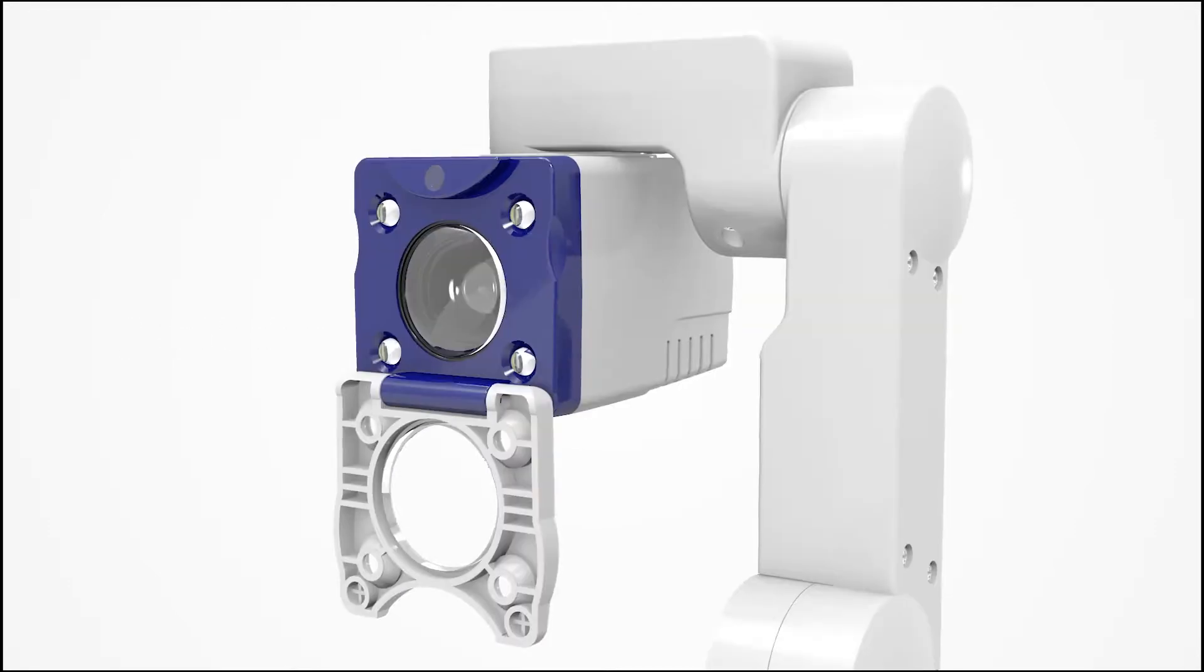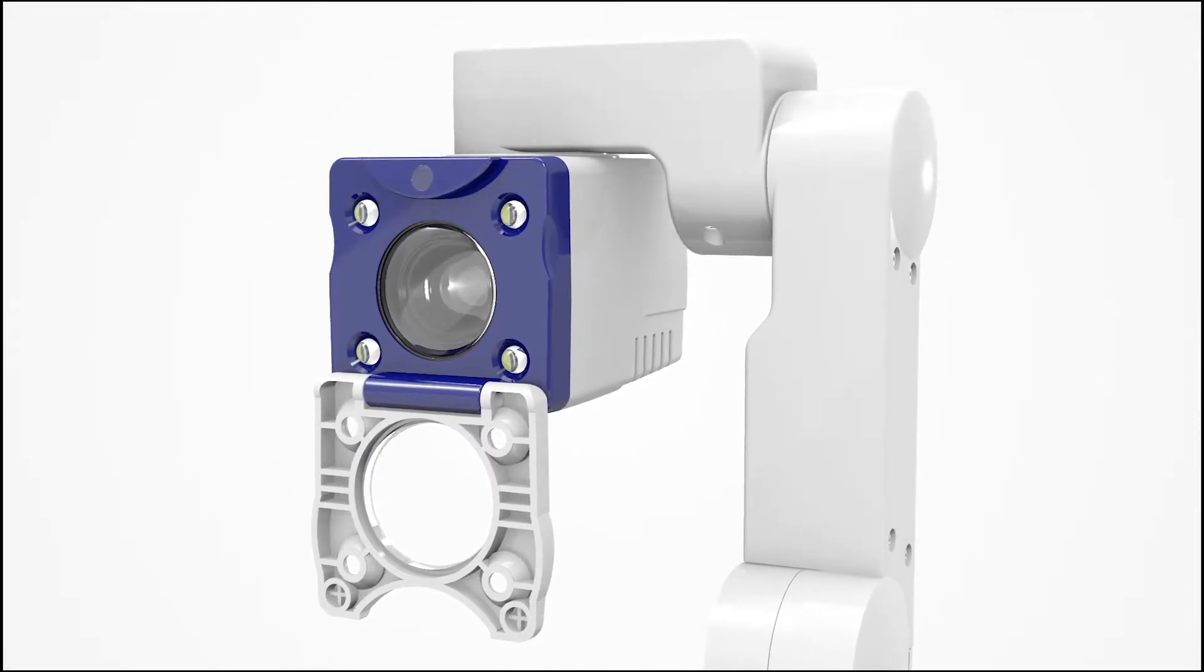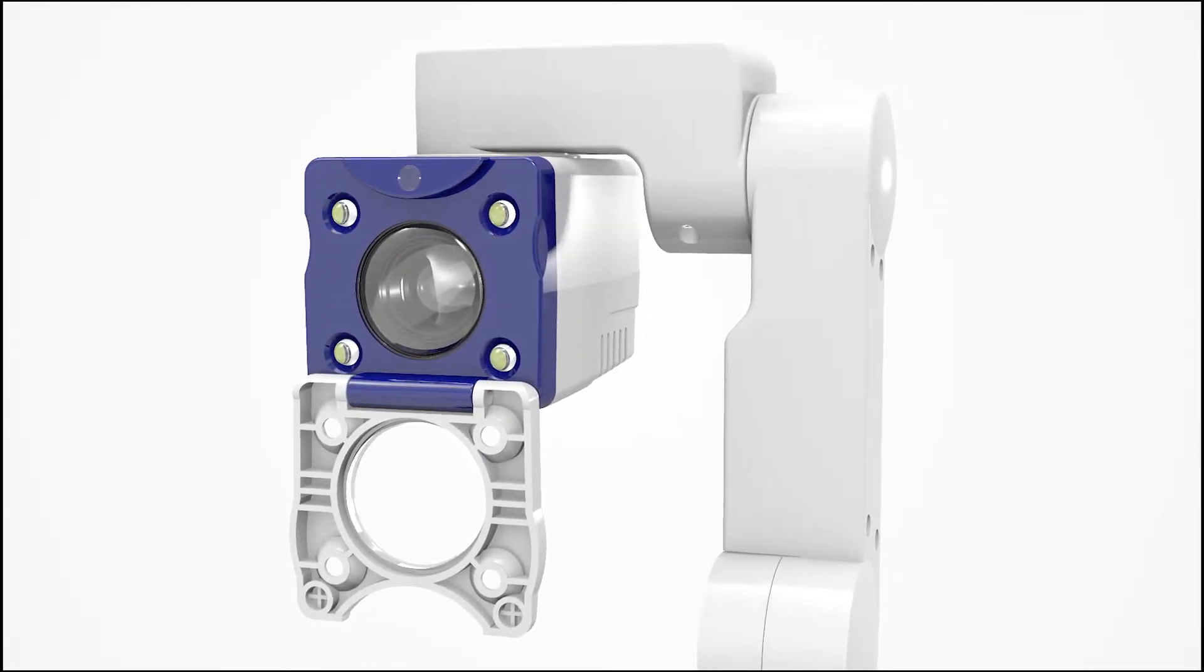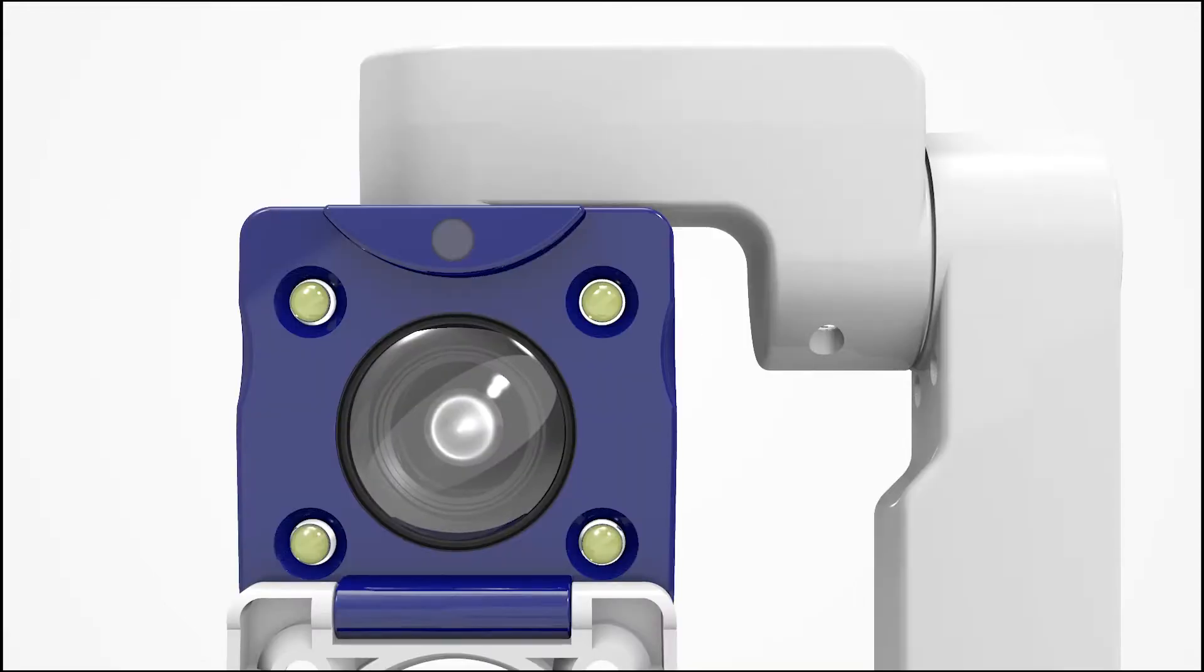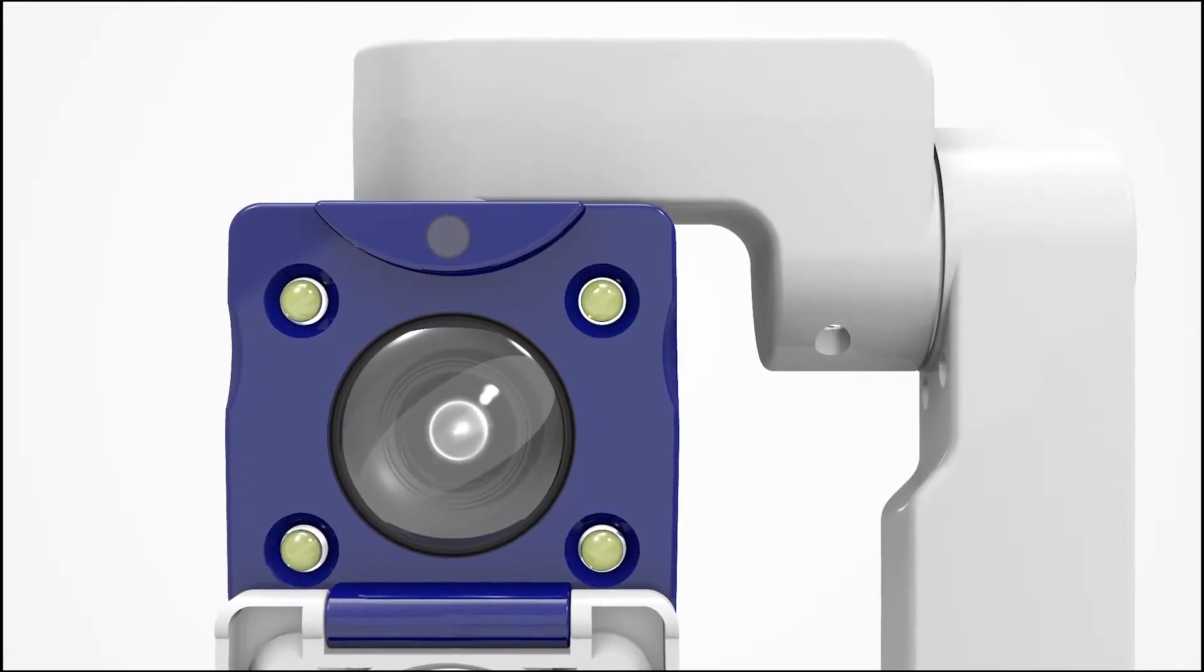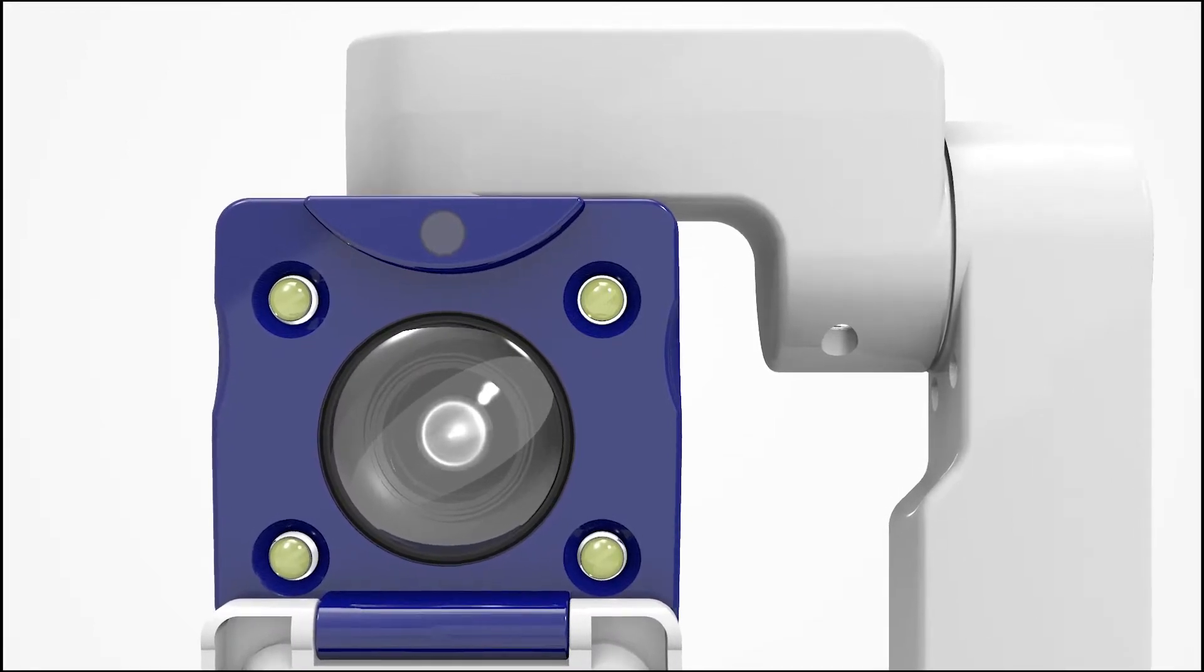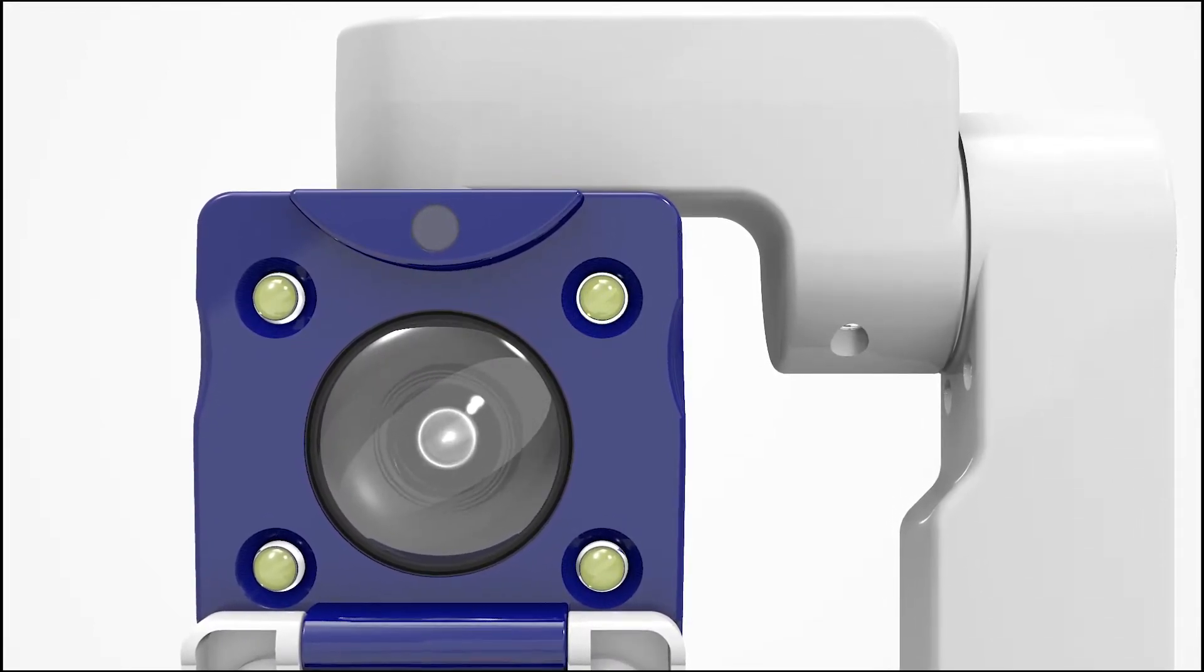eBot Advance is equipped with a high quality HD camera to provide a crisp, clear reading experience. With its high output speed, it offers a sharp image even when zooming in, zooming out, or moving the camera.